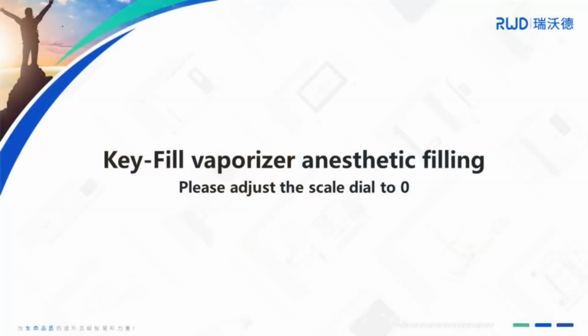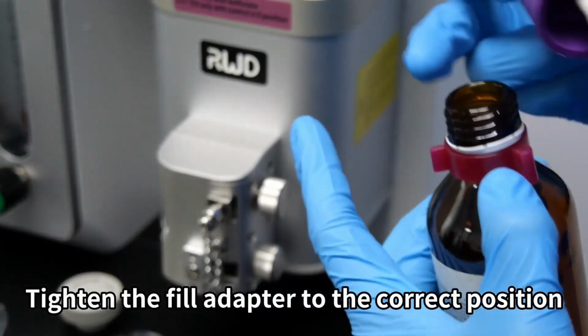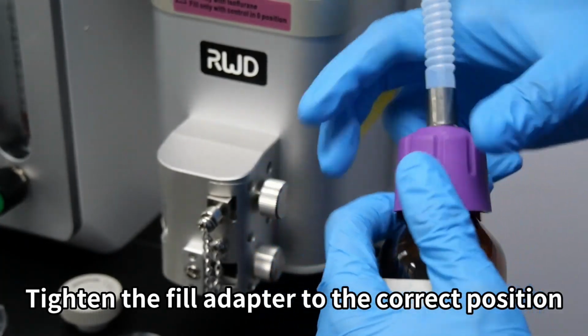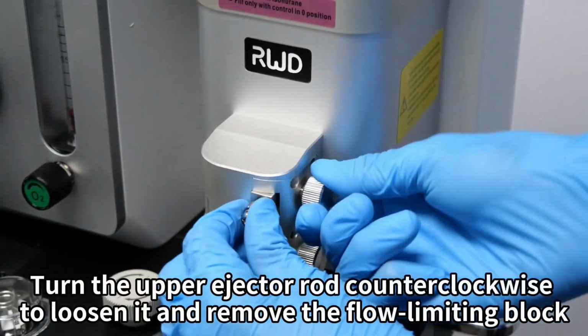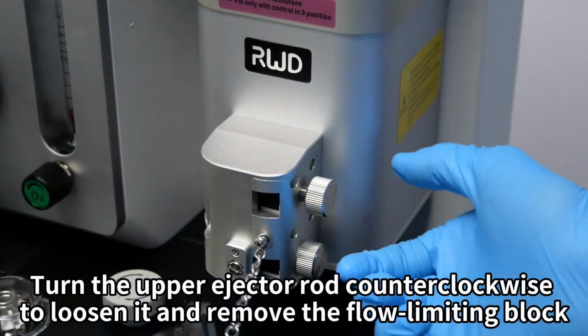Please adjust the scale dial to 0 position during the anesthetic filling of key fill vaporizer. Tighten the fill adapter to the correct position. Turn the upper ejector rod counterclockwise to loosen it and remove the flow limiting block.